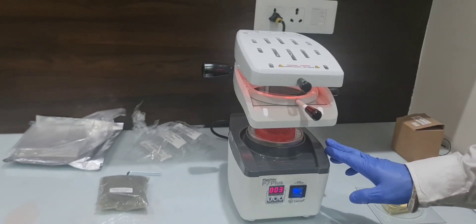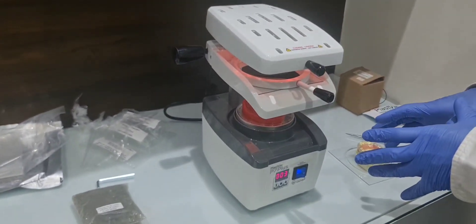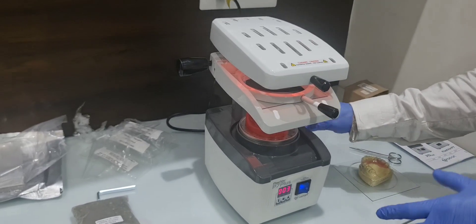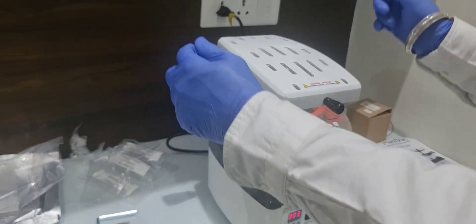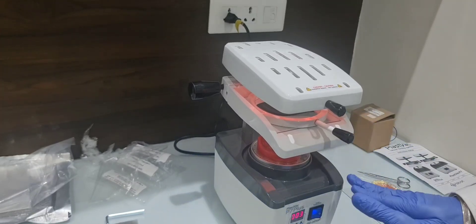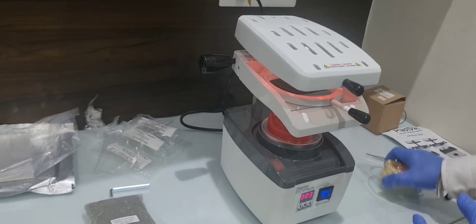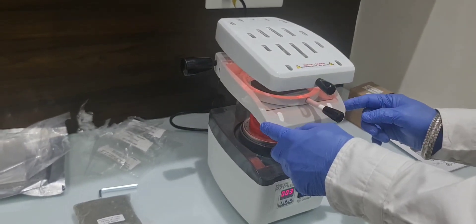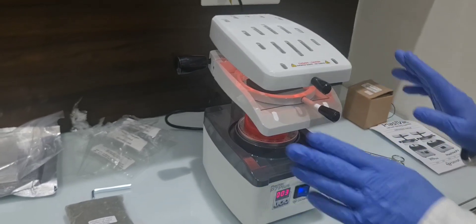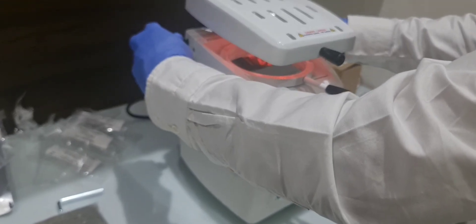One thing is special in this, it has a sensor. The vacuum is on now. You don't feel that there is a sound, it's silent. It has a sensor. When this tray or the sheet will come down, the vacuum will automatically be on and it will suck the sheet and it will come the mold like this. I'll give you a demo like this so you should not think that there is no vacuum. Now the sheet is down, I'll loosen that a little bit.